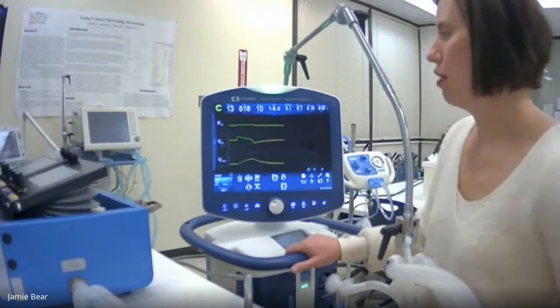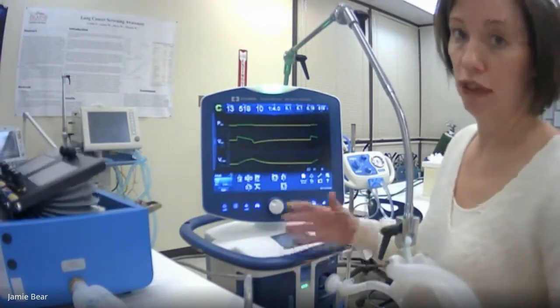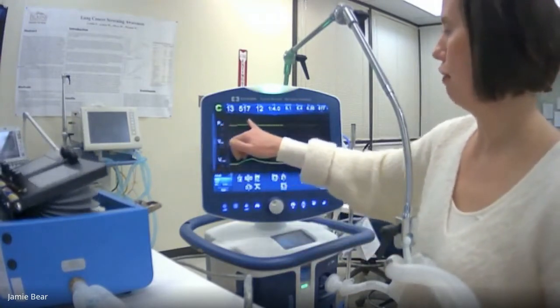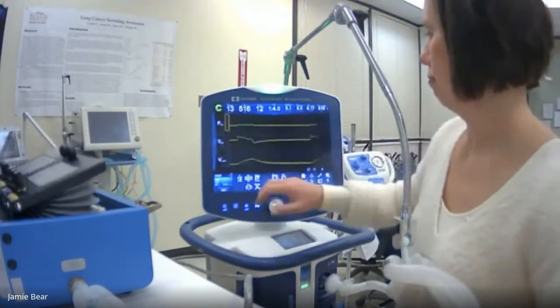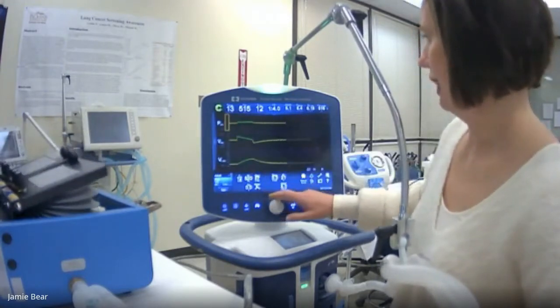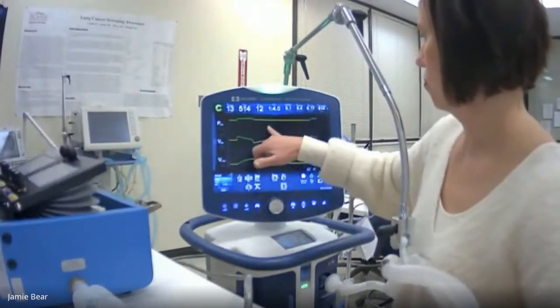So when we talk about our three scalars, we're talking about one variable versus time. So the first one here is pressure. And so this is our pressure versus time waveform here. Here you can do that with your finger, so you can get the scale so you can see it a little bit easier.